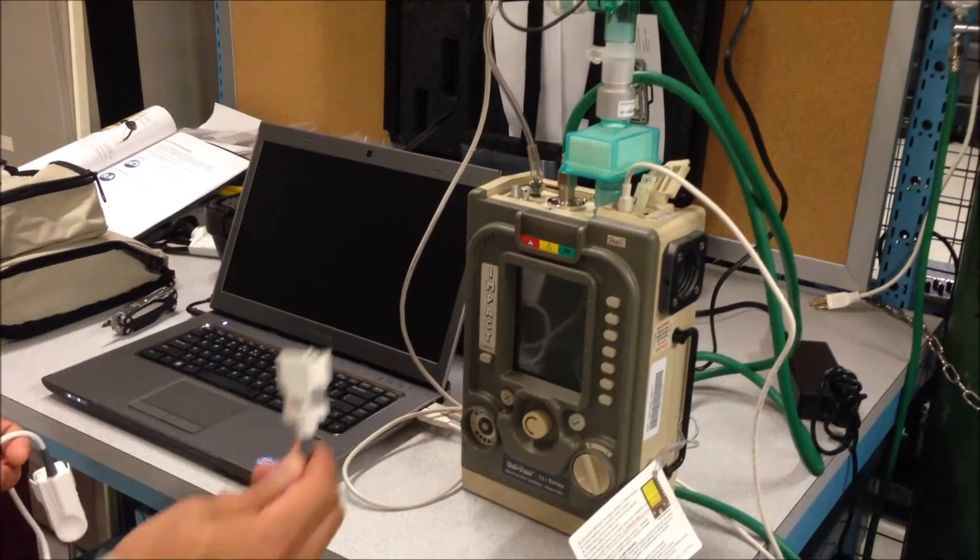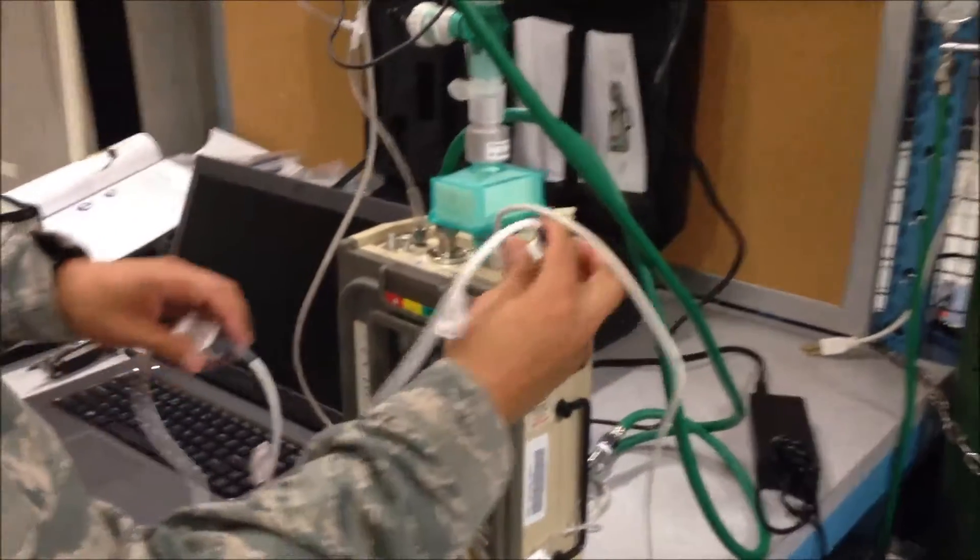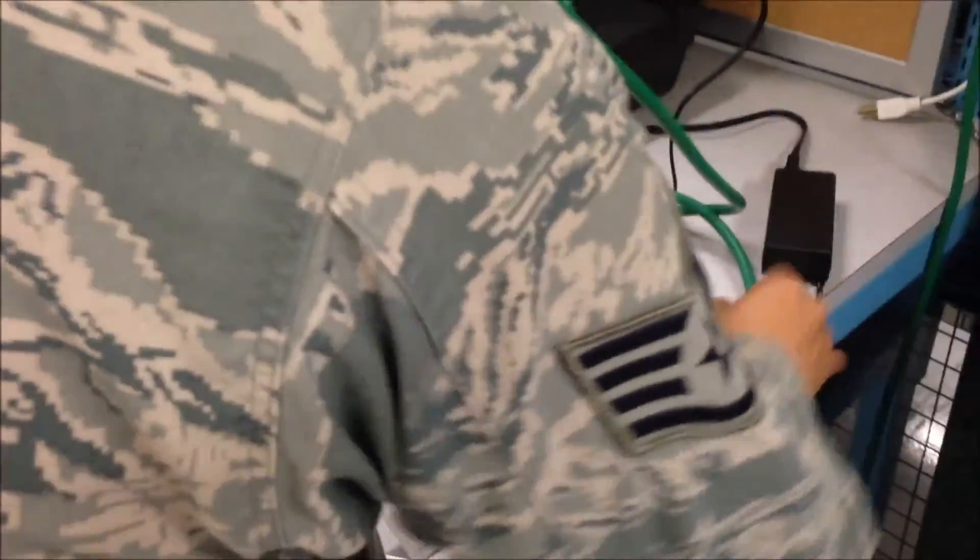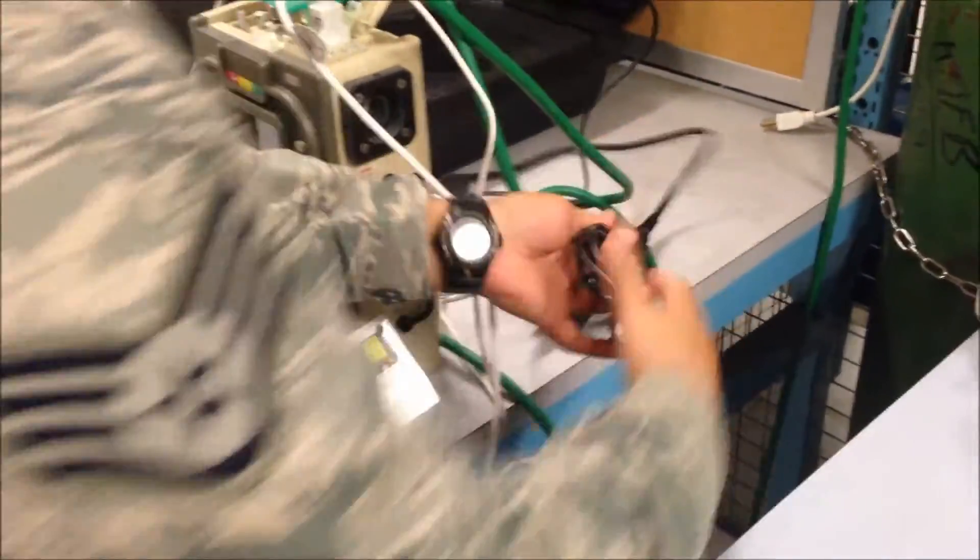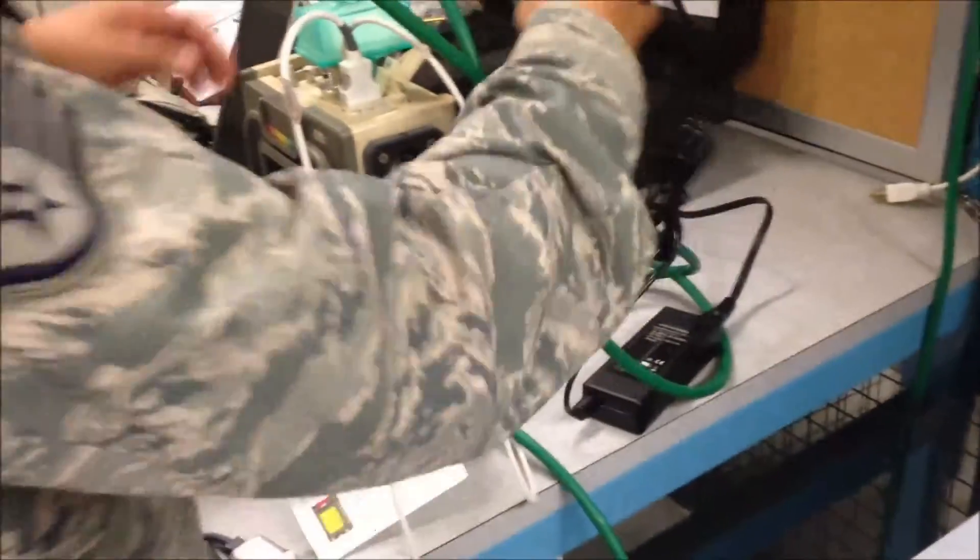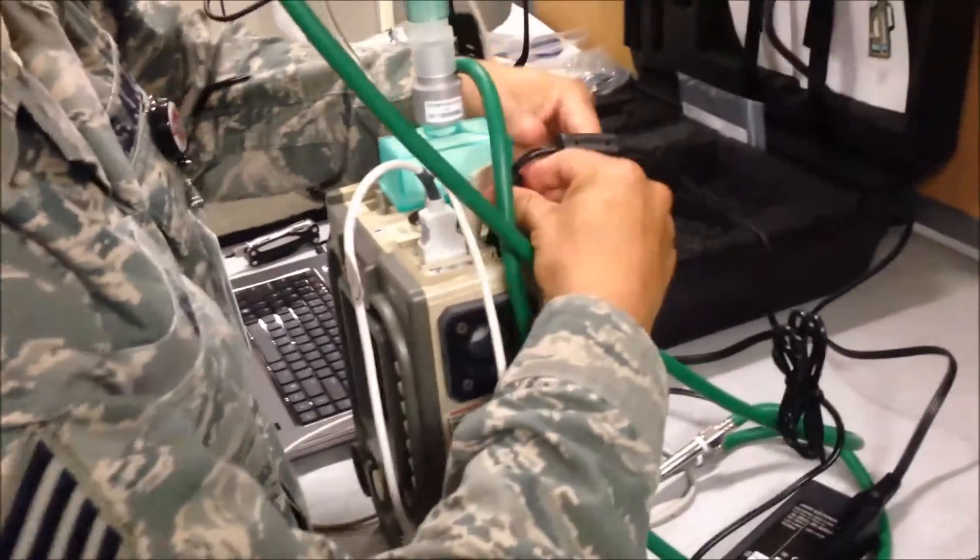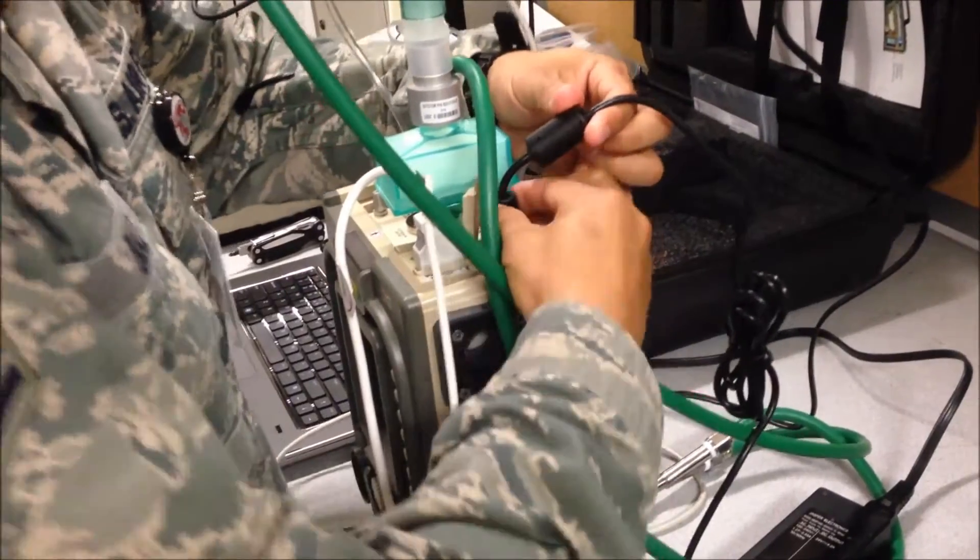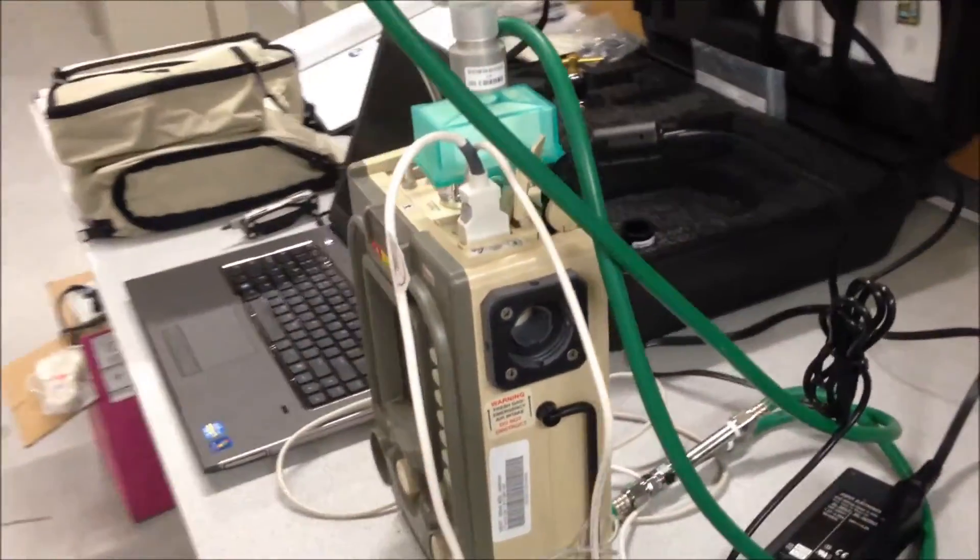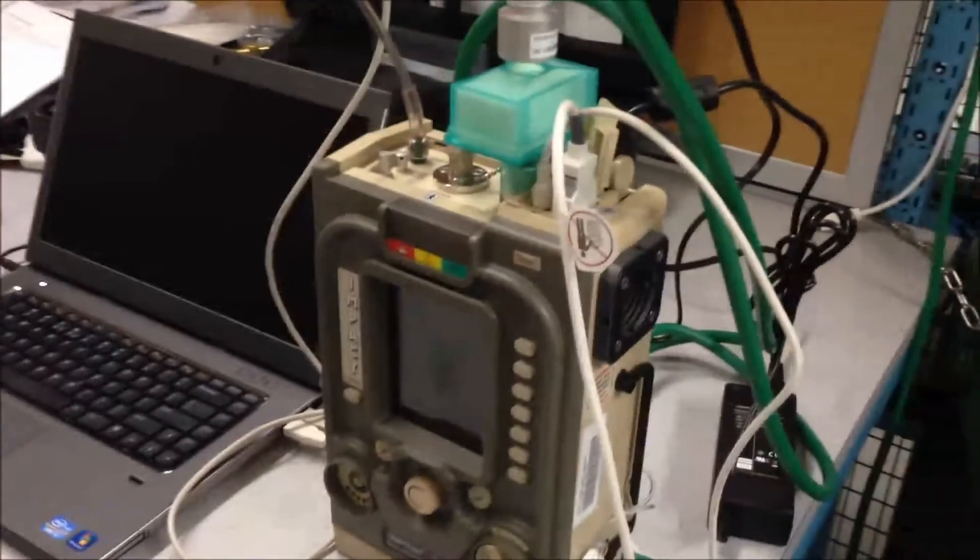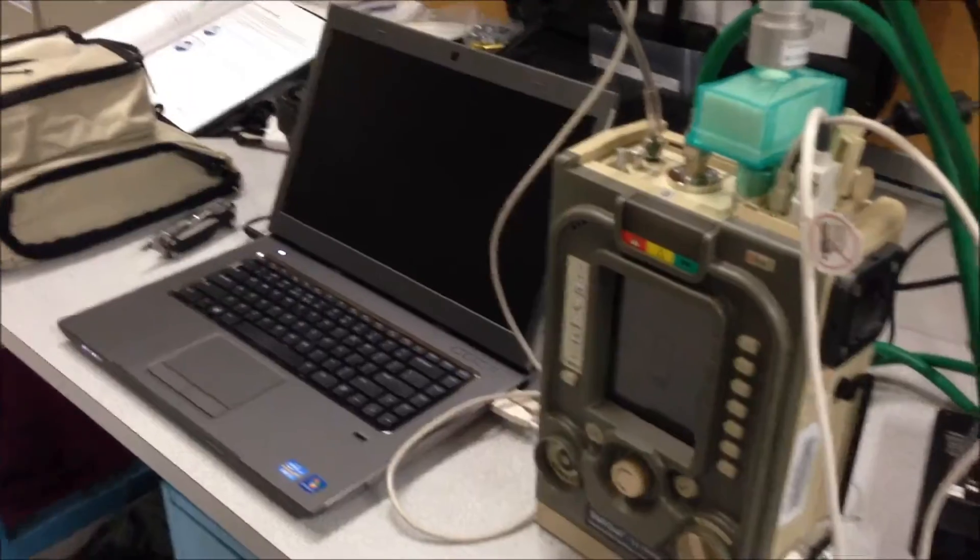Finish connecting all your cables to the 731 unit, making sure to connect the power to the 731 as well. At this point, you are ready to begin calibration.